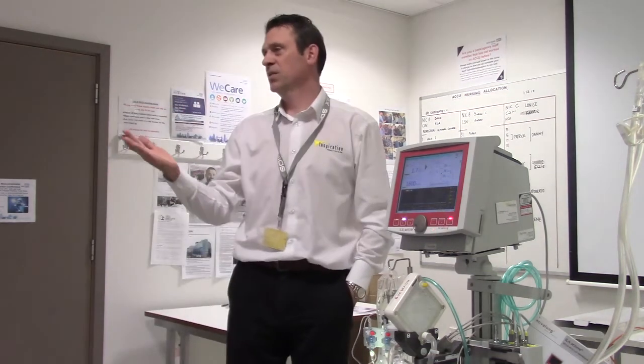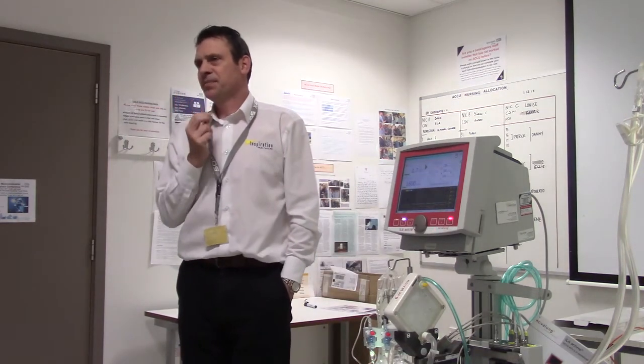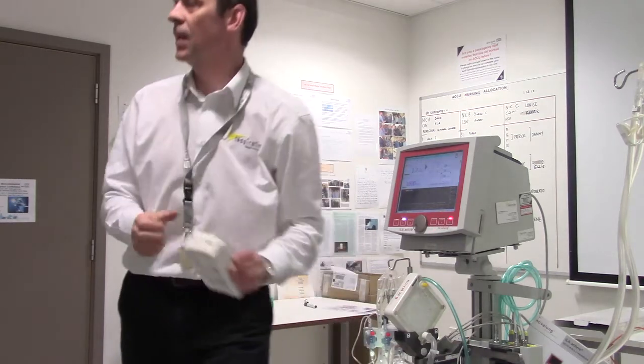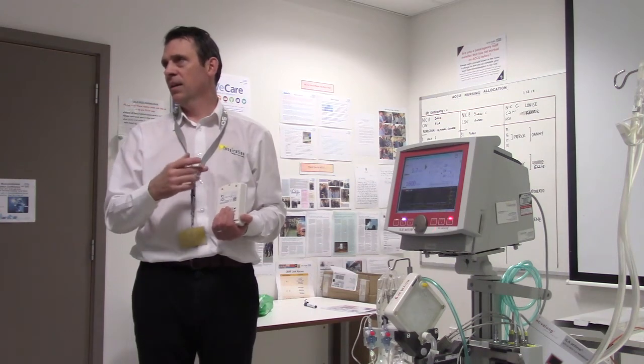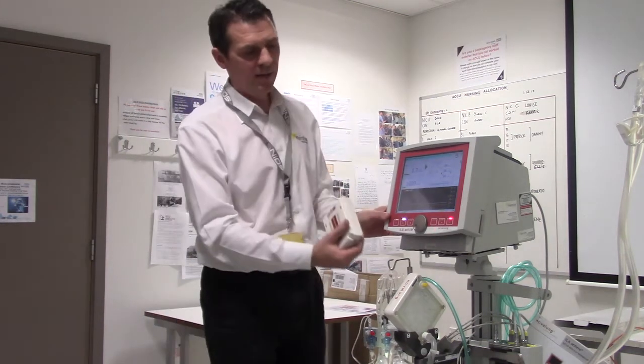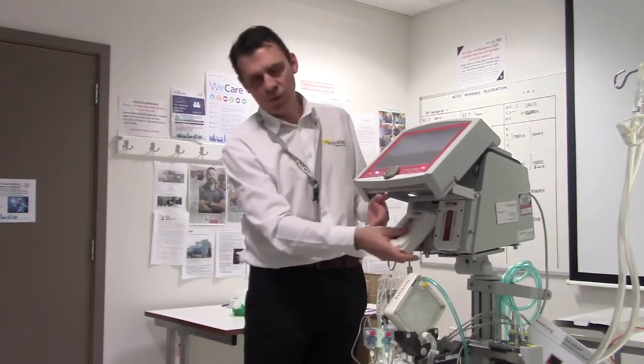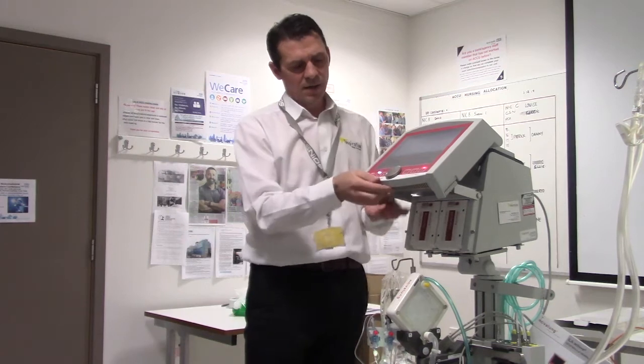How many patients will you get like that? How many times have you thought about getting this out in the last six months? Probably less since we've had the ECMO service. It's important to pick your patients — what are you trying to achieve? Are you trying to prevent intubation or wean and extubate? Is it ARDS or a rebound? How long have they been ventilated? Going on ECMO criteria, if anyone's been ventilated for seven days, ECMO centres aren't interested. This gives you a clear idea of what you're trying to achieve. CO2 clearance is brilliant for the right patient — it's a matter of choosing patients with the appropriate co-morbidities.